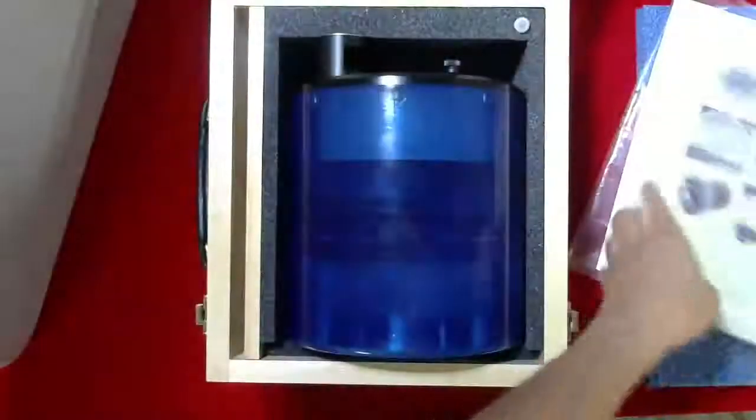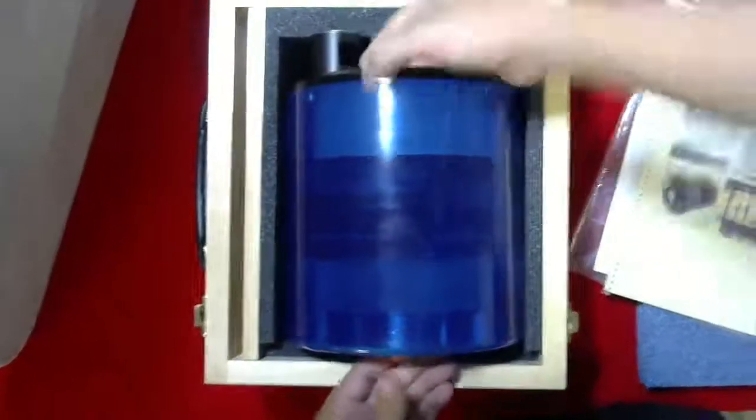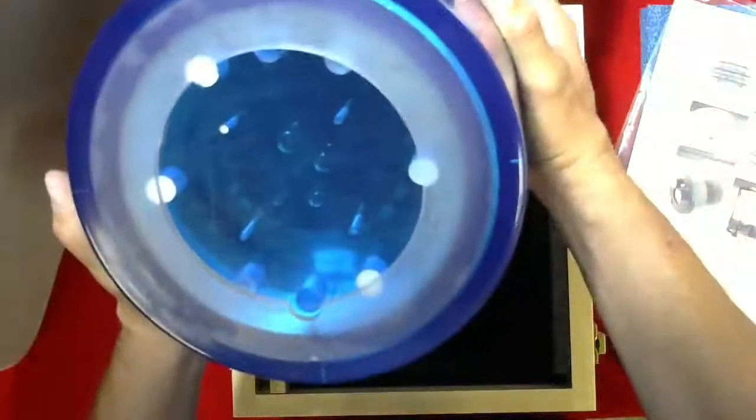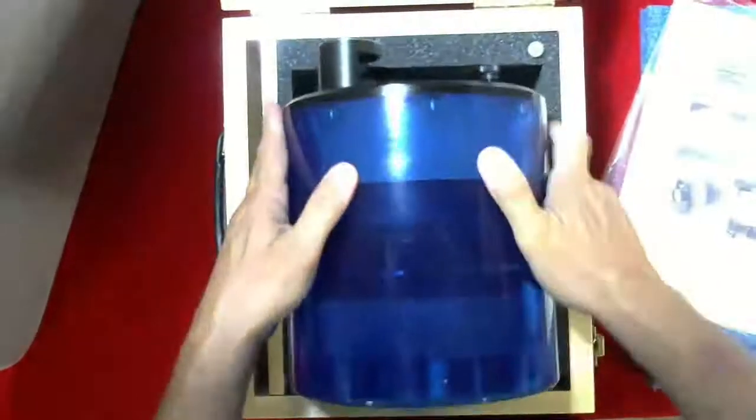This is the actual phantom. Let's move that here so you can get a better view. What this has is a number of test objects for testing your CT unit, and again it comes with a great protective case for that.